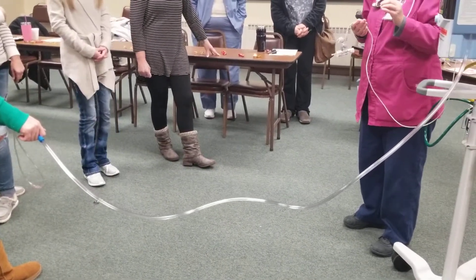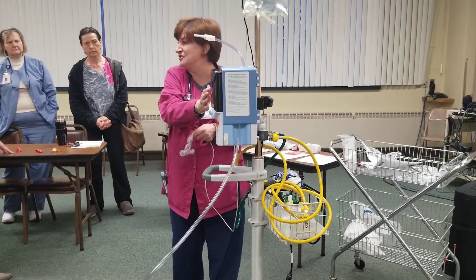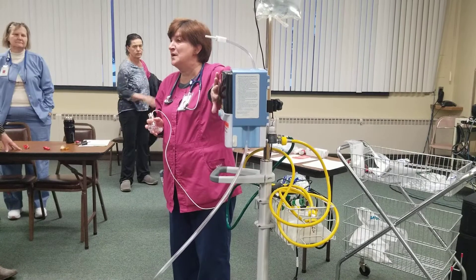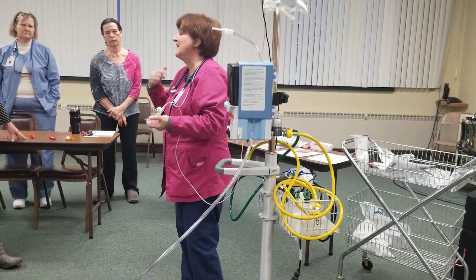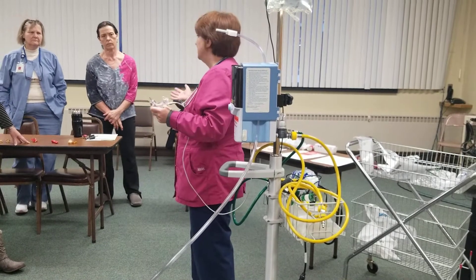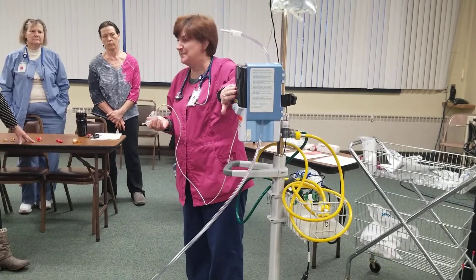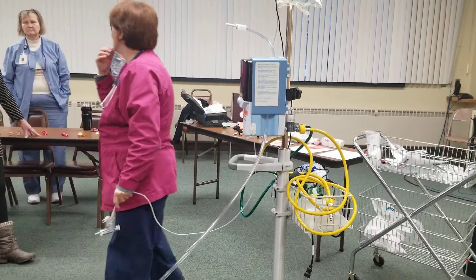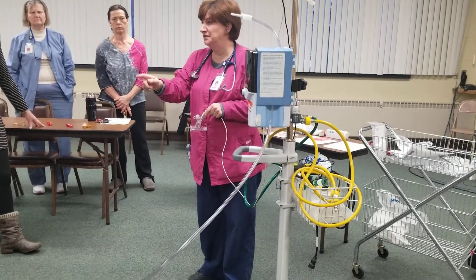When we're using this and going back and forth — or if they can go onto their nasal cannula — do I shut this off? No. We always want to leave it running. We can change the settings back to room air at 5 liters per minute so you're not running the high-flow oxygen. When you put it back on, change your settings. Also, if you notice they're getting a lot of water and constantly blowing out moisture, you can change the temp down to 35°C and they probably won't have quite as much water coming out.